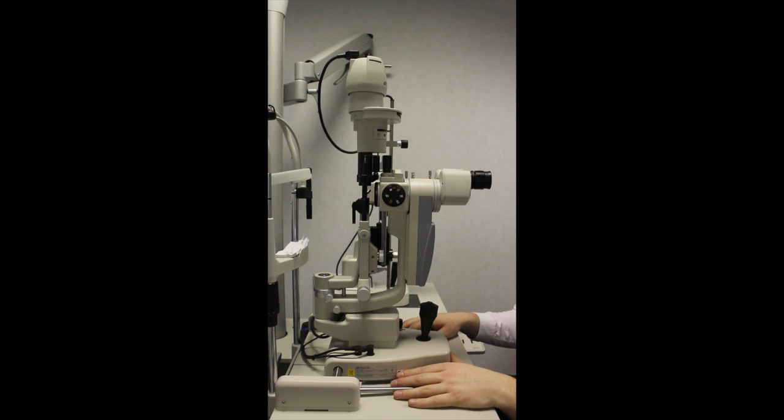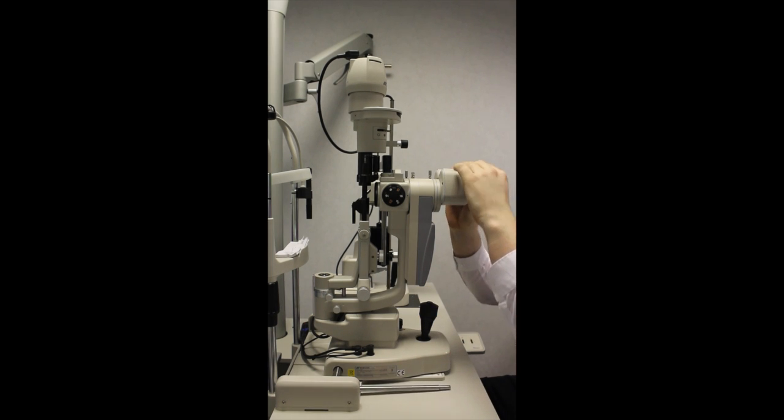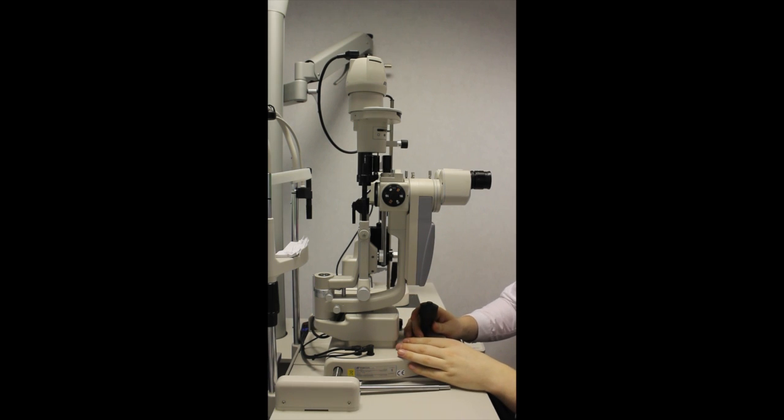The observation system has a variable eyepiece focus that will compensate for the refractive error of different operators, as it is advised to operate without spectacles, as a greater field of view can be gained with the eyes close to the eyepiece.